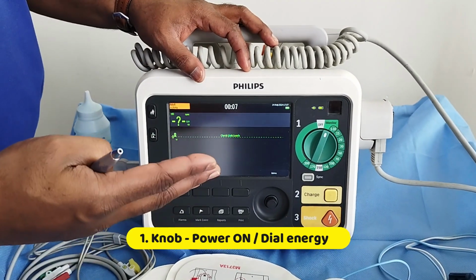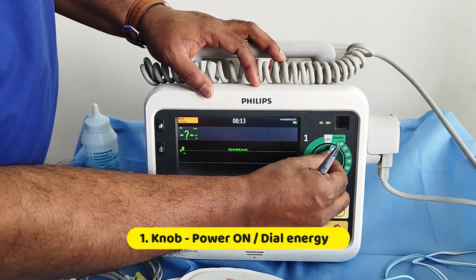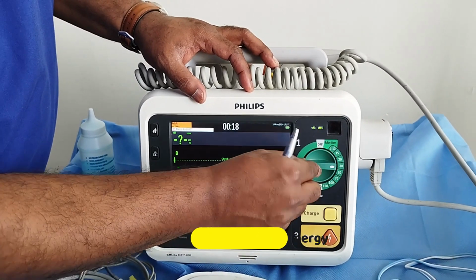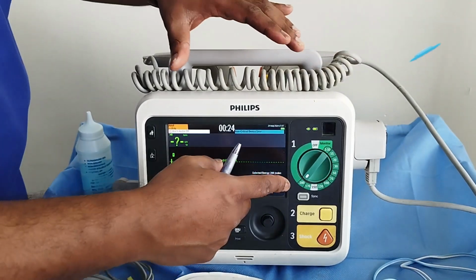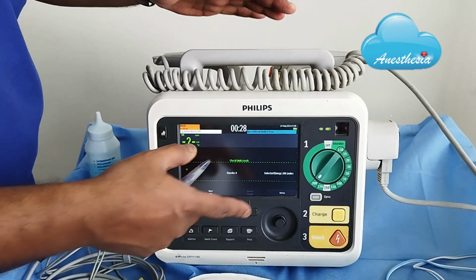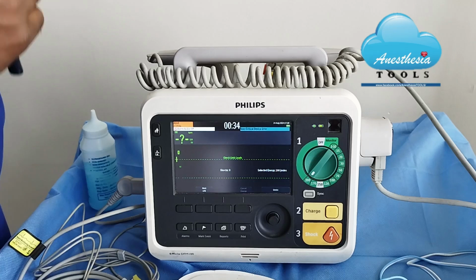If you are using this machine for defibrillation or cardioversion, we need to select the electrical energy to be discharged, which we can do by dialing this button. For cardiac arrest, we can dial up to the maximum available in the machine. In this machine, it is shown to be 200 joules, so I assume this is a biphasic defibrillator.